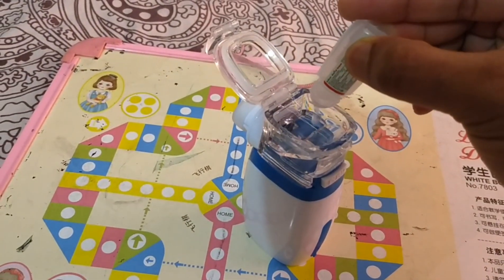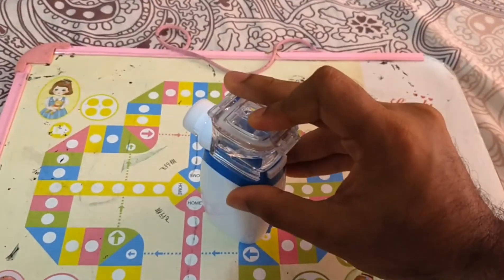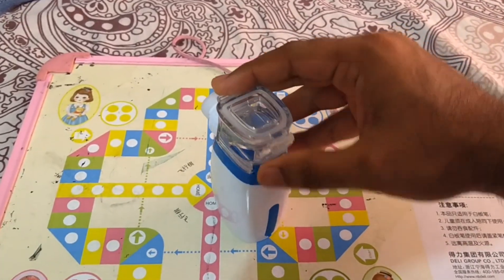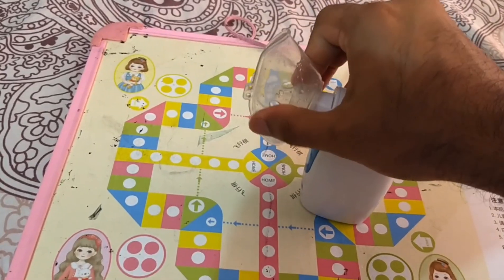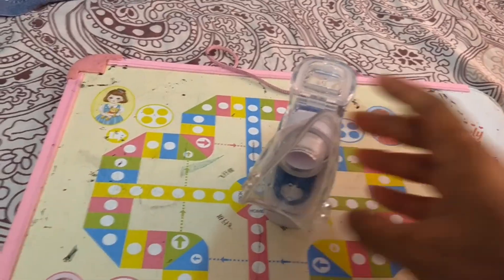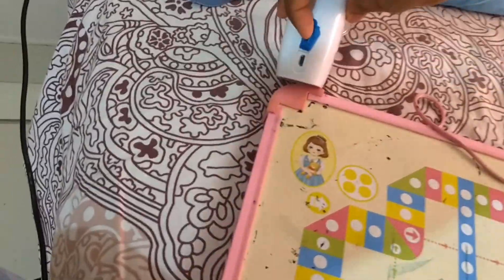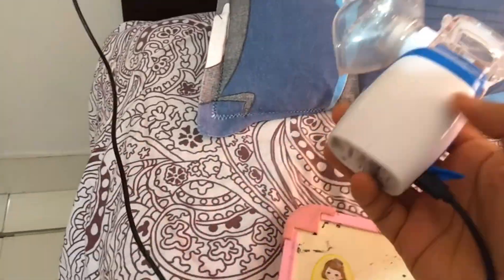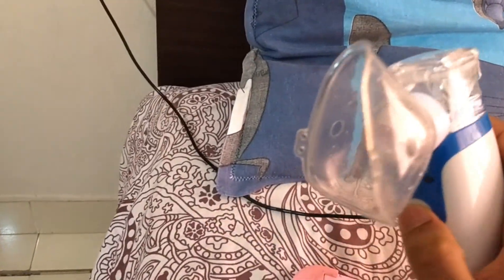Let me show you a live demo. I am filling some medicine now. I am going to operate it using USB power. Never use the device on battery and USB power together. Before connecting the USB cable, we have to remove the battery if it is there.